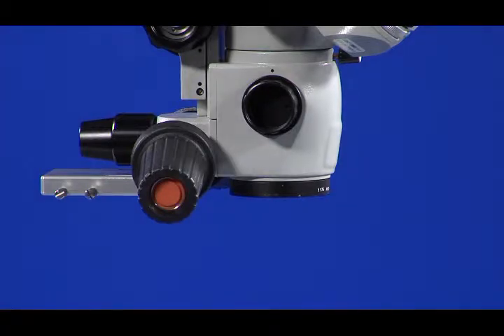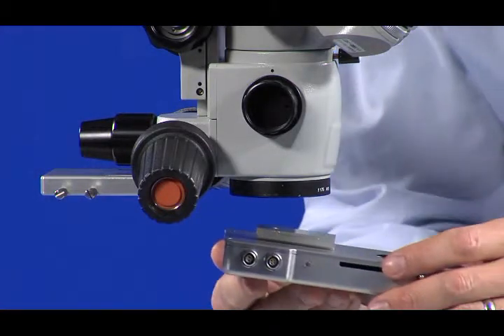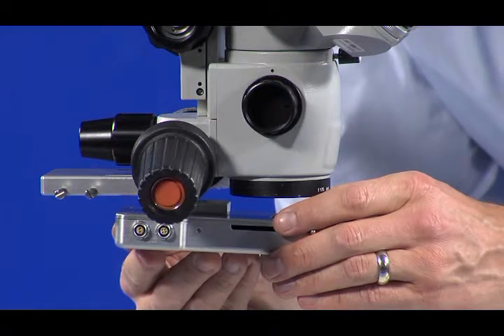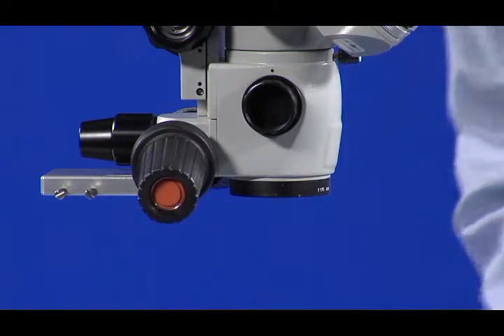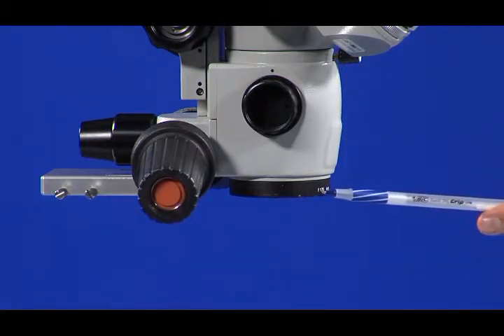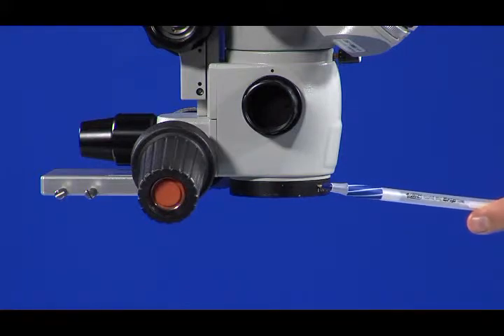Some scopes have additional attached equipment or oversized objective lenses. Thus, you may find that you have to insert the CLA from front of adapter plate or from back of adapter plate. In some cases, you may even have to remove objective lens in order to attach the CLA.